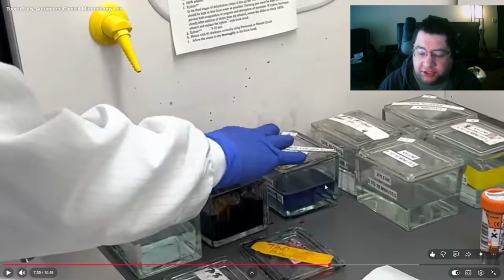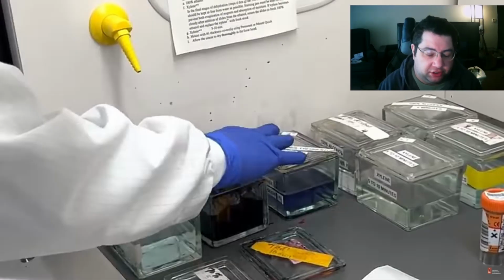That parasitology is basically, so you have some PCR testing. They mentioned earlier they use an instrument to look for something called Entamoeba histolytica. That's a parasite. You have some PCR testing available for certain parasites, but for things like tapeworms, you really need to look at a stained slide of the stool specimen in order to look for eggs, proglottids, things like that. And that's a lot of tech time.